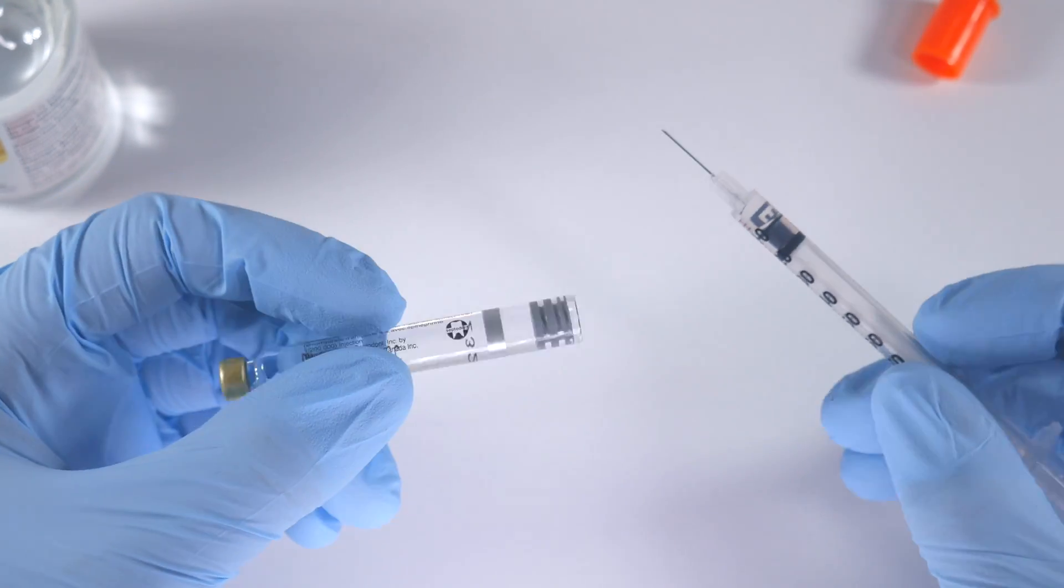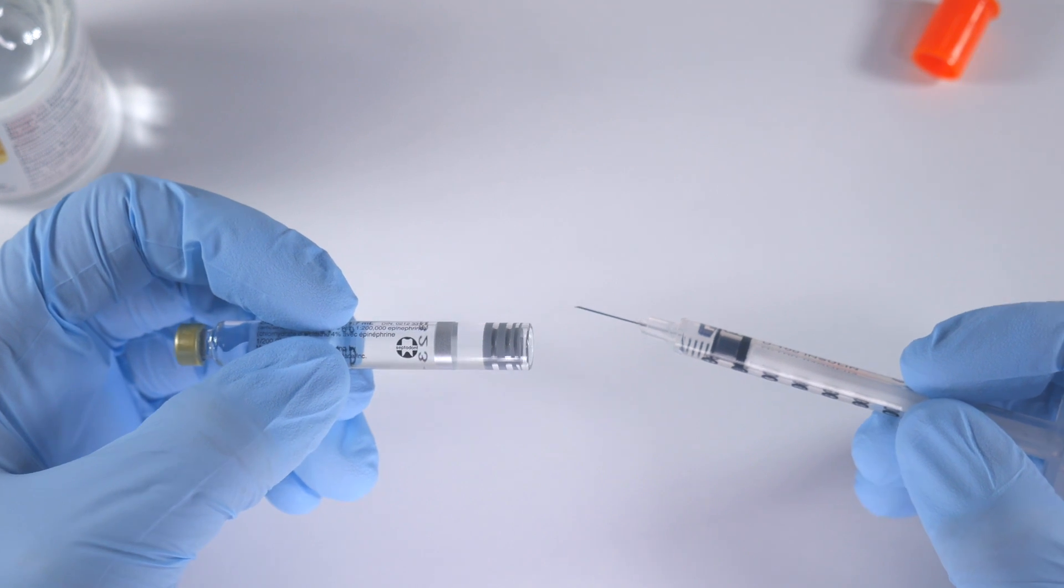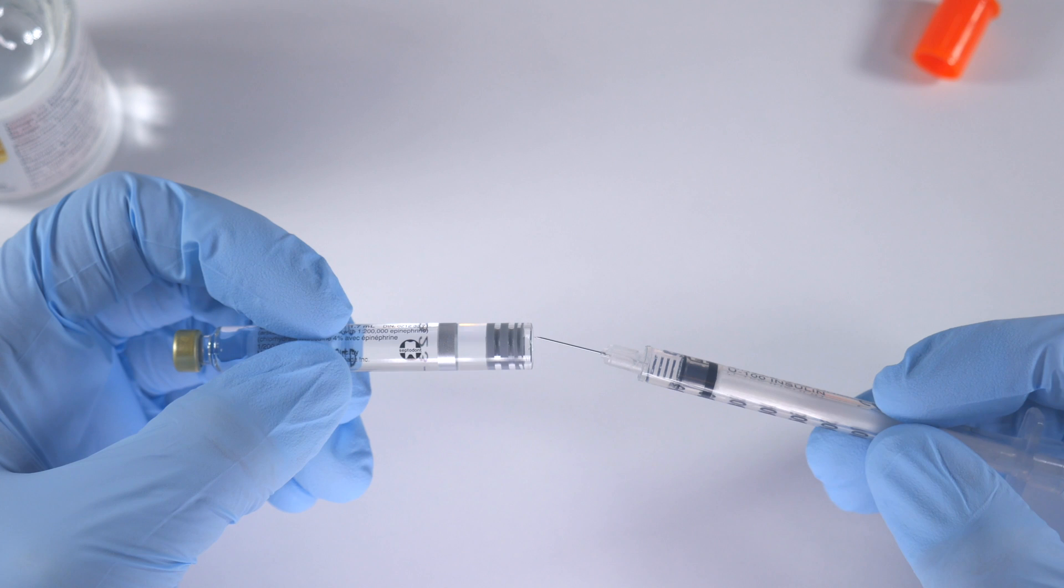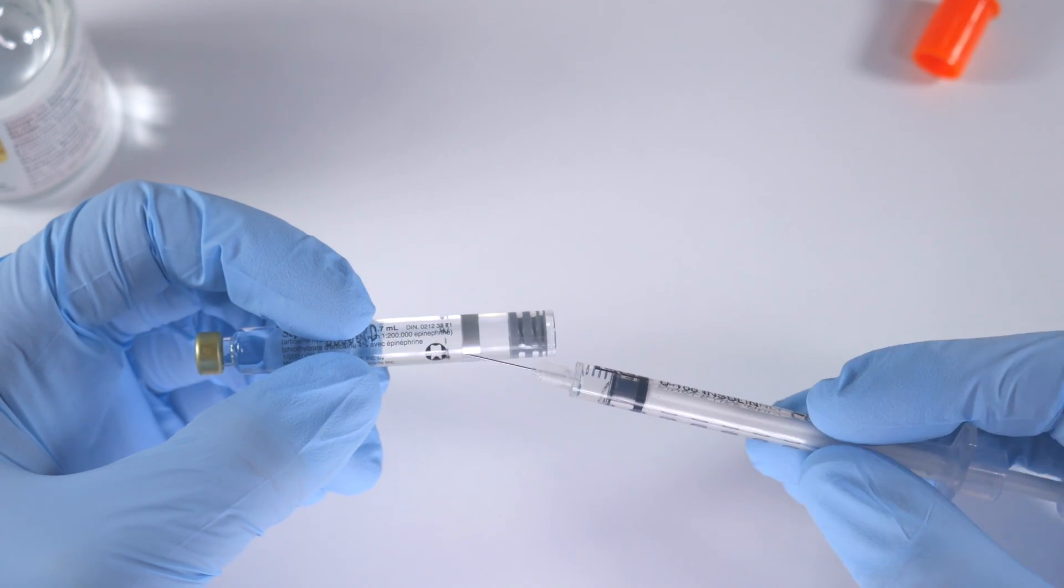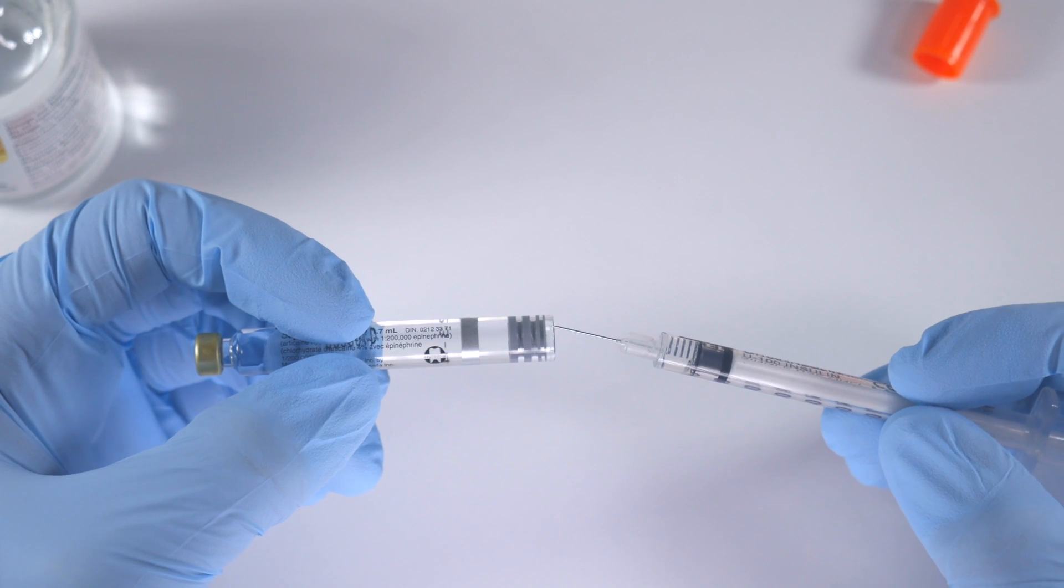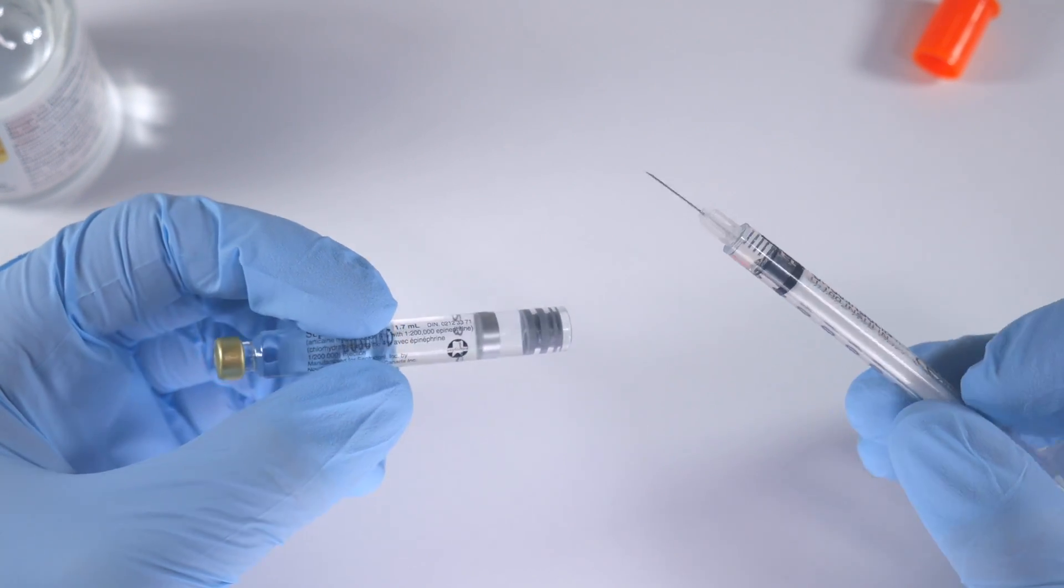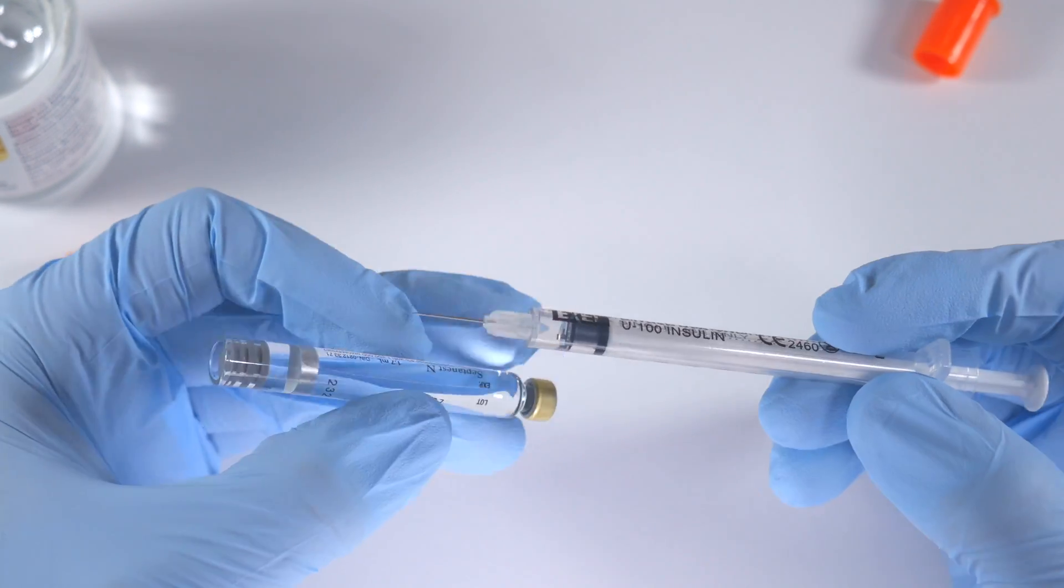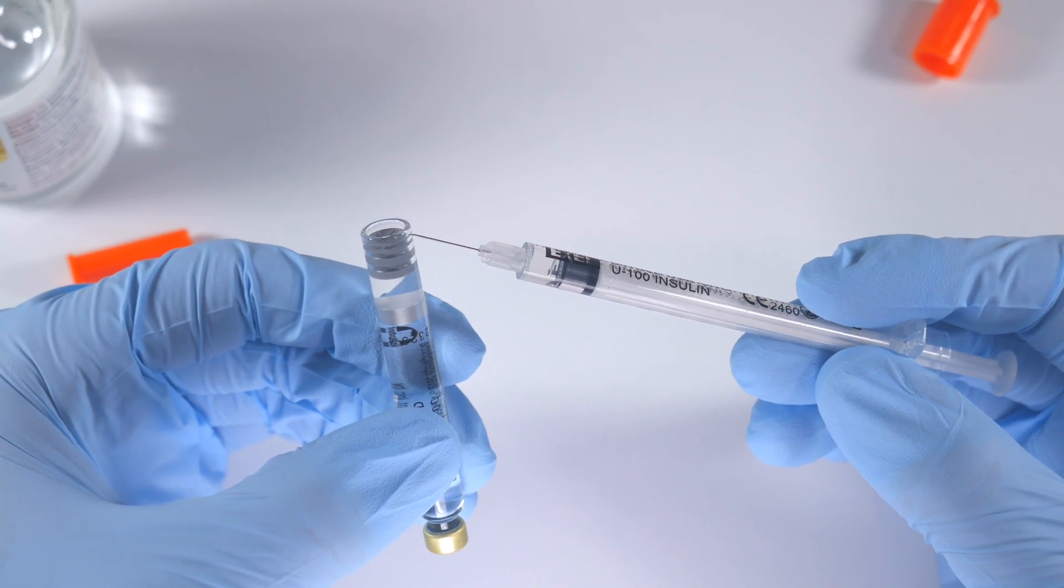Now when you're doing this, the reason you can do it is that the stopper in your carpule actually has a little bit of room where it can still move. So this carpule isn't totally loaded with anesthetic - it's got a little bit of space, a little forgiveness yet to allow you to put this amount of solution in.